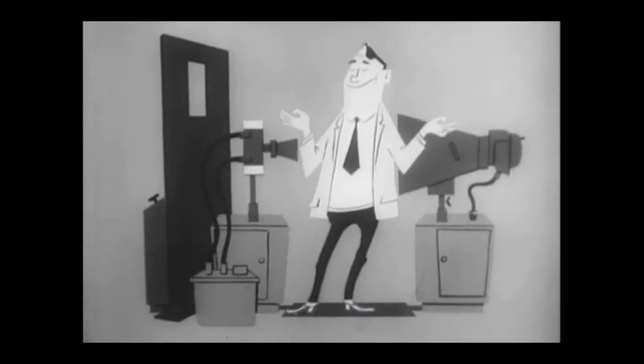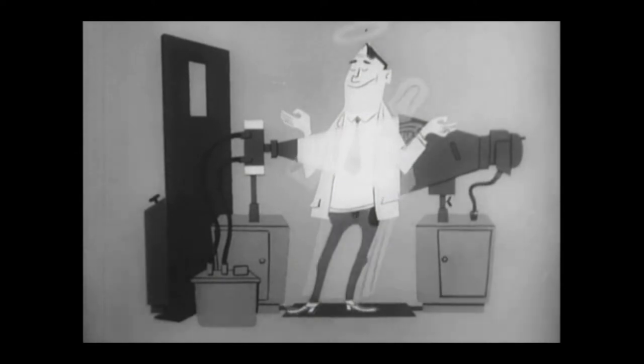But x-rays, says Ike, I haven't seen anyone keel over from them yet. But it could happen, and here's why.